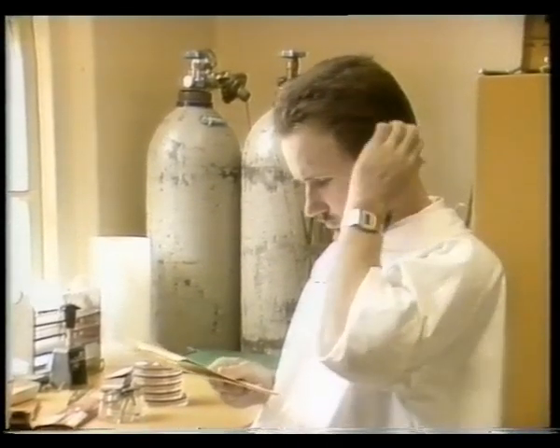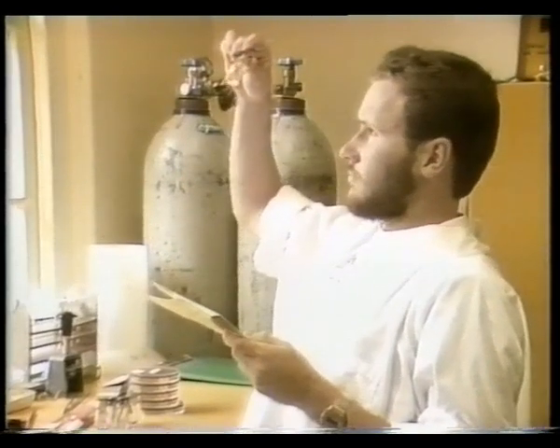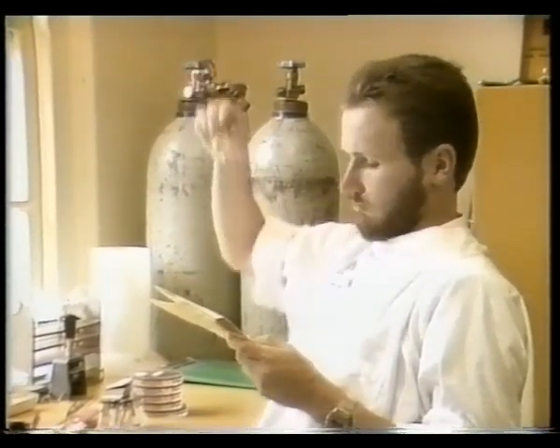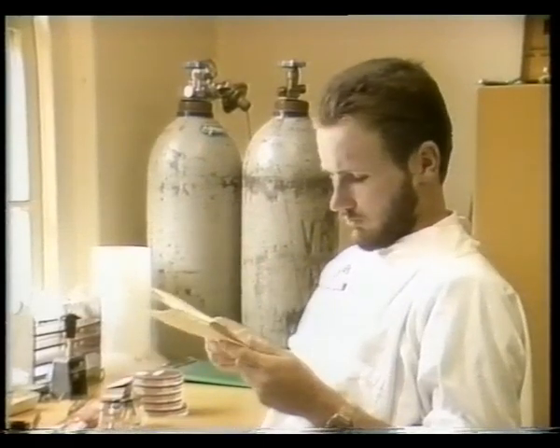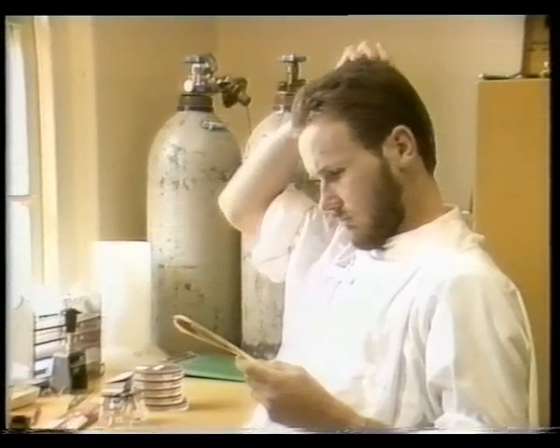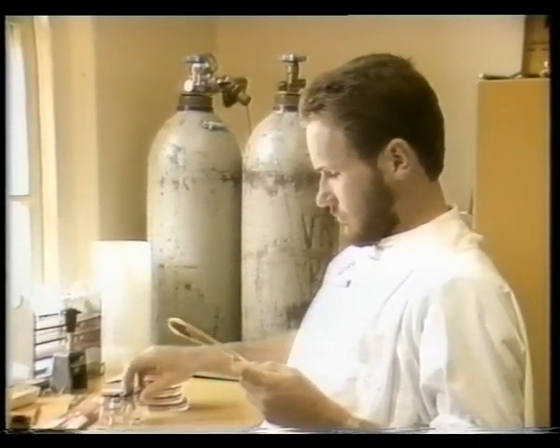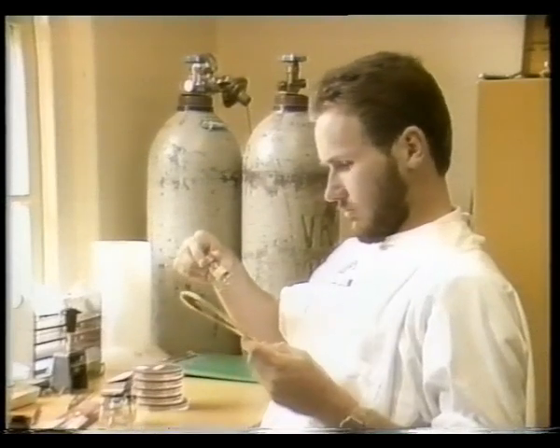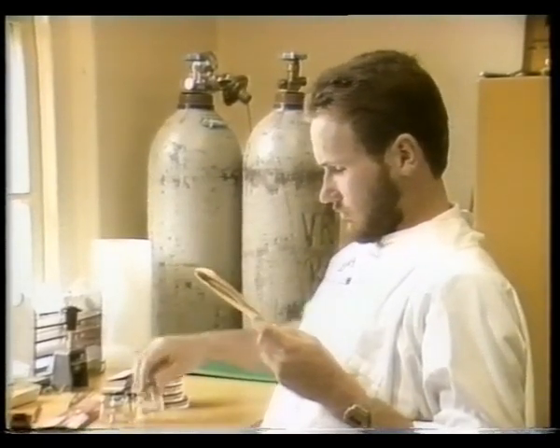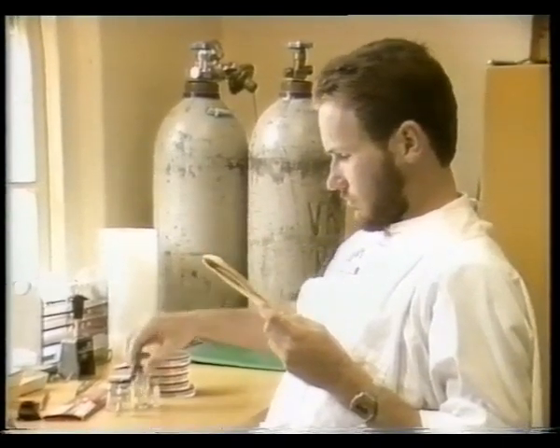The three most common presenting clinical situations are urethritis, vaginal discharge, and ulcerative lesions in the genital area. As the diagnosis of STD is complex, it is important that an accurate laboratory result is issued. To obtain a useful result, it is essential that full clinical notes are supplied, and that the laboratory worker understands these notes.